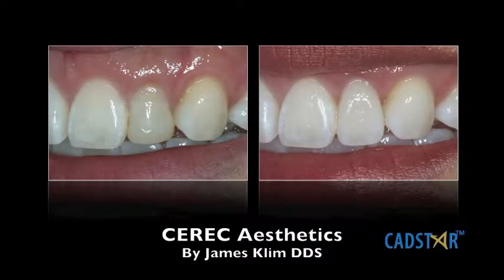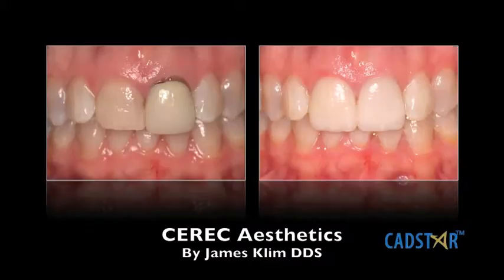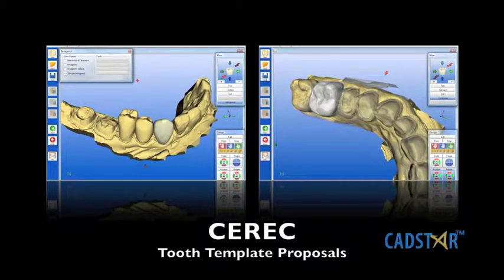For instance, I love the ability to control my anterior aesthetics. If I'm doing one or two crowns, it's great — you need some skill training for that. But the design features and particularly the templates in the CEREC have inherent gorgeous morphologies. If we set the case up right, the CEREC will design a restoration that's gorgeous in just about 30 seconds. That's mind-boggling to me.